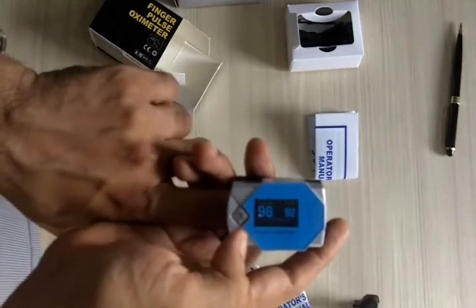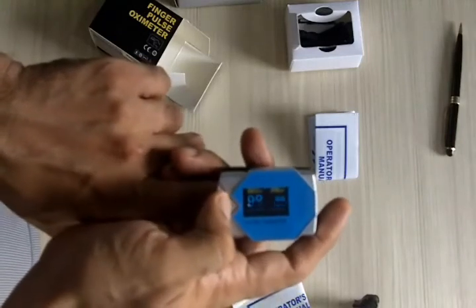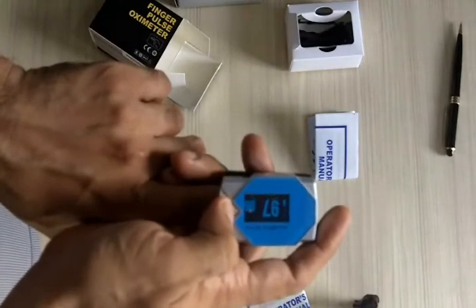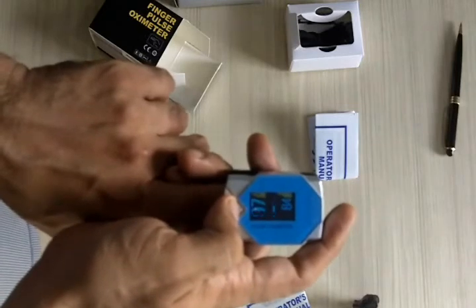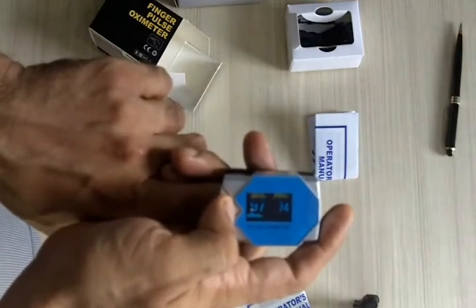It gives you the pulse rate and also triggers an alarm if your SpO2 levels fall suddenly below 94, or if your pulse rate is very high or very low. You can press the button to get readings displayed from multiple directions, making it very convenient to read no matter which way you're holding it.